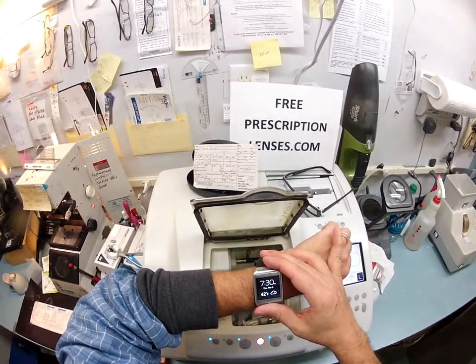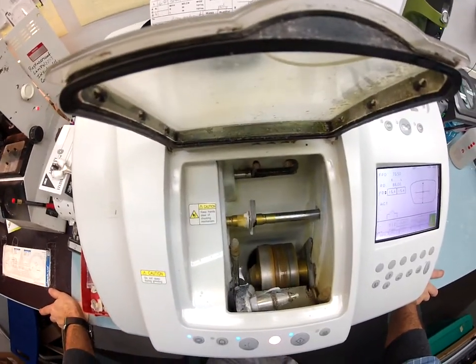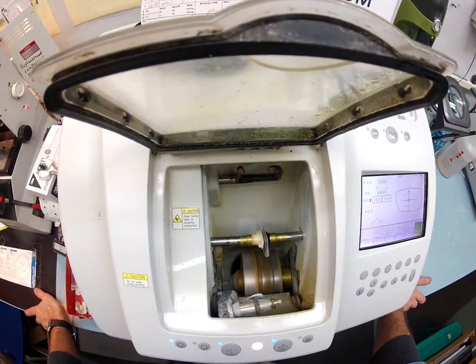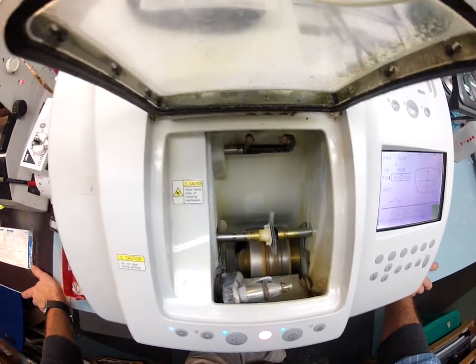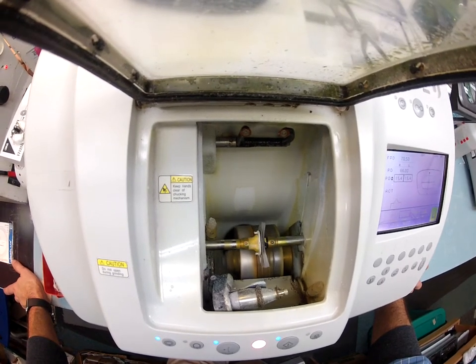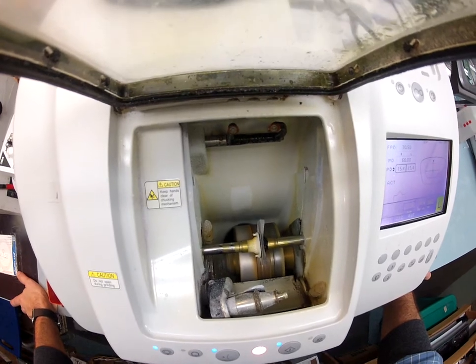Hopefully I've got just enough time — I forget what time it was when we got started. But I still have to put the tint on here and I want you to see me do that. Speed up, speed up. I think this can go a little bit faster for $30,000. Little by little, I'm going to take a tenth of a millimeter off.